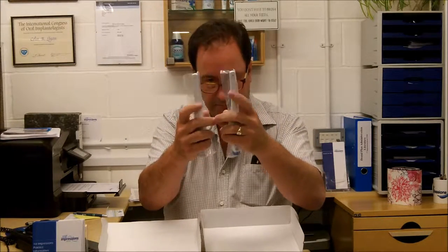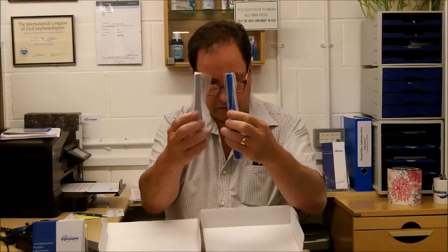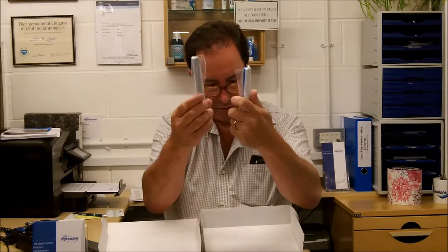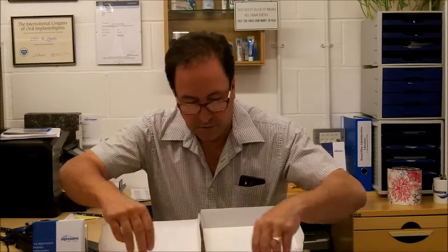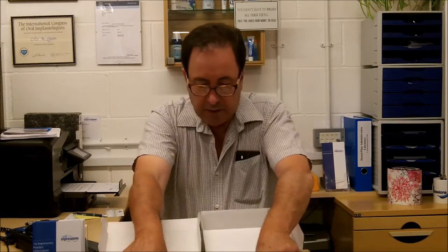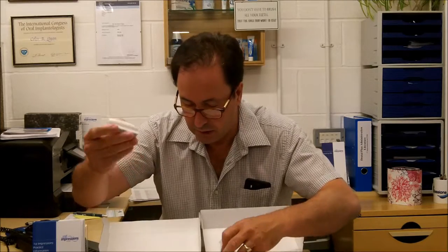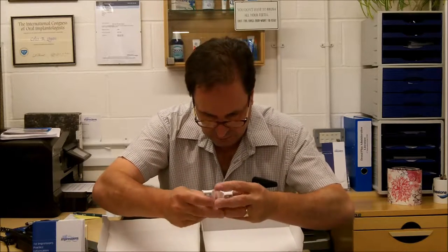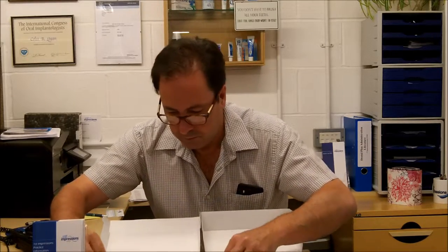Very similar. They've got similar colour cameras. The only thing I would say slightly different is the buttons are different. They've both got two buttons and I think this one has got a light on it. They both come with a USB cable. They both come with a tiny CD. And this one comes with a holder and some screws. And this one comes with a holder and some screws. The holders are very similar but not identical.